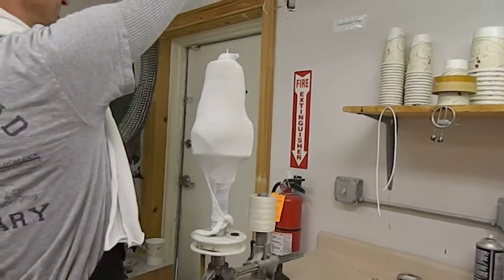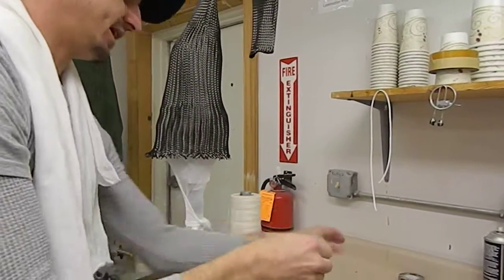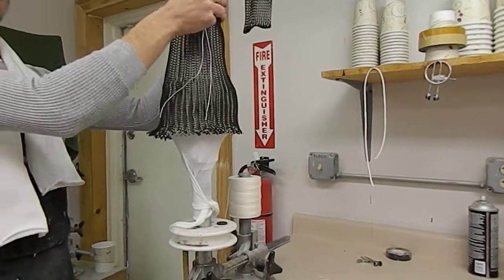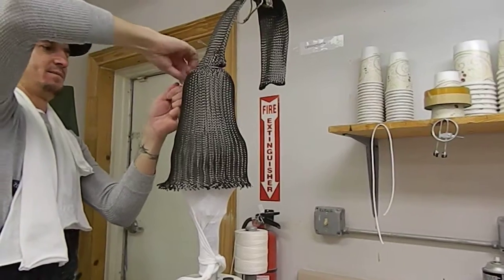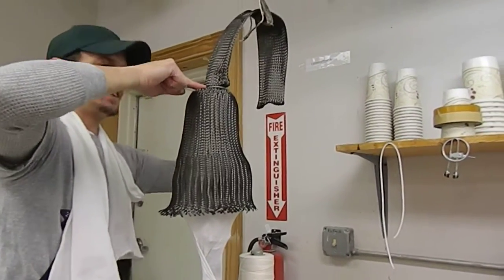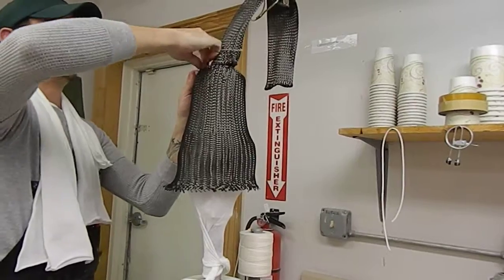This is what I'm going to do here — I'm going to do the same thing as I just did. I leave it room until I know I've got it covered. I'm not going to tie in above the lock; I'm just going to tie in to the plate itself. It'll stay in there. I don't need any carbon up above it. It's just extra hand tied in, loop it around. But if you get it tied in here, then you don't really need it up there.